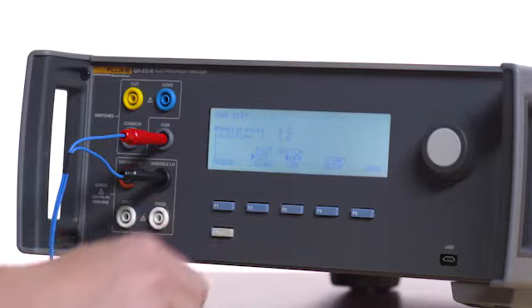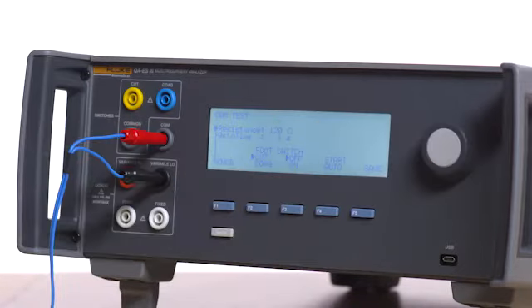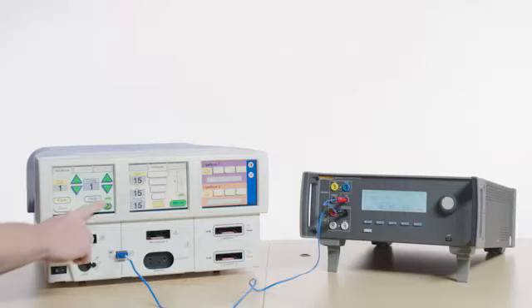Press F4 for CQM. Set the resistance on the QAES3 to 120 ohms. Confirm the REM indicator is green.